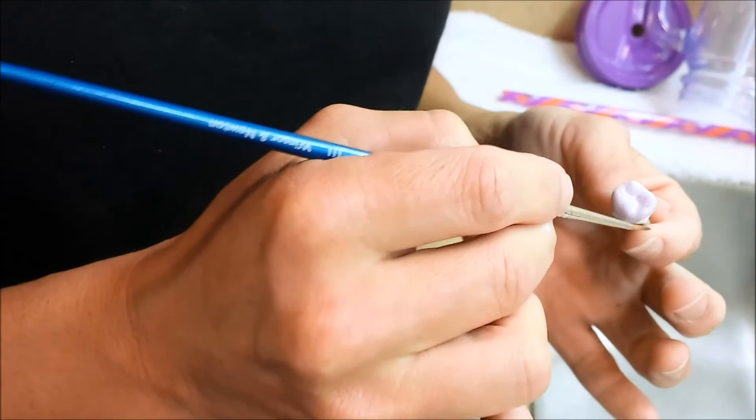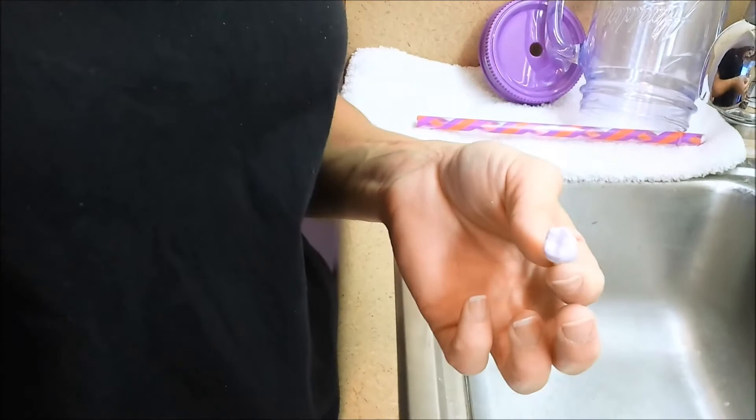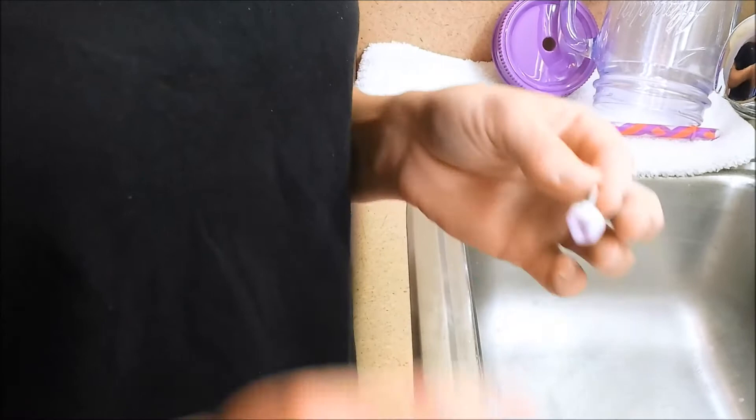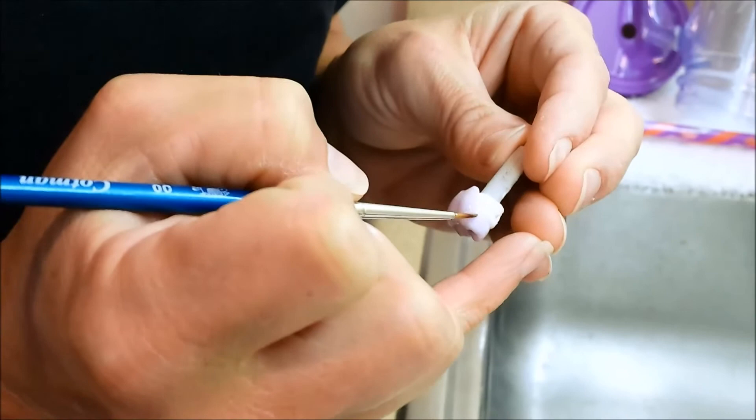Let me be careful not to get it under the margin because then it will affect the way the crown fits around your tooth, and you can remove any excess so it doesn't affect your bite. And then the sunset color I just add just a little bit down here. And you don't see it much but when you bake it on you'll see a subtle transition. Even though you don't see the tongue side I'm still going to add it.